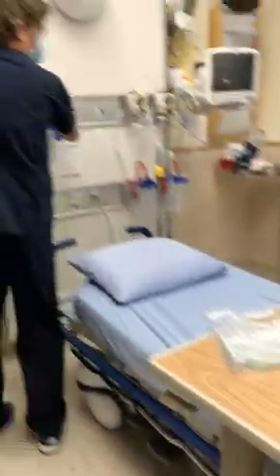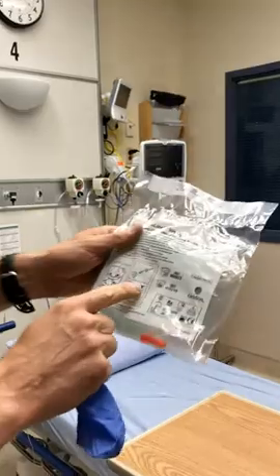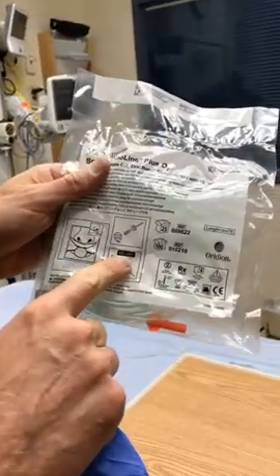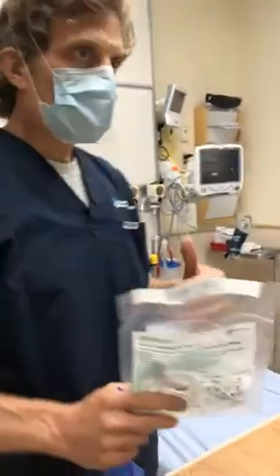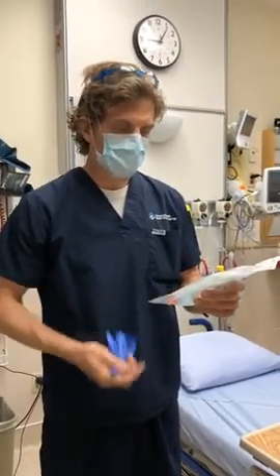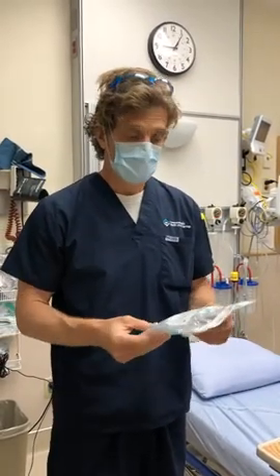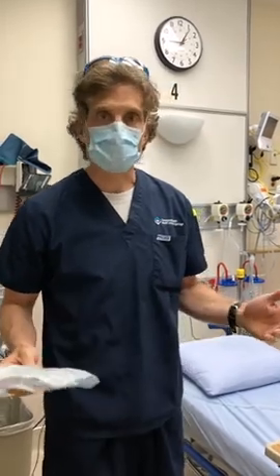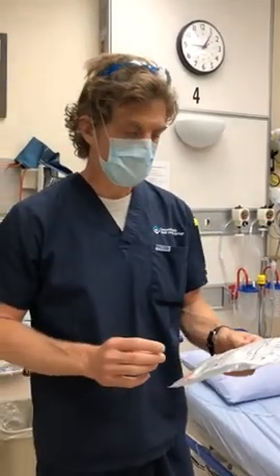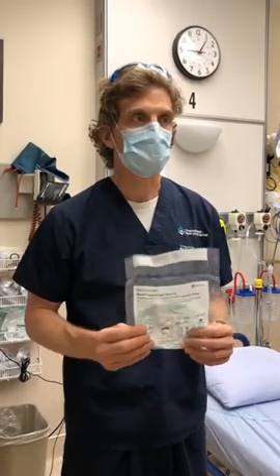The reason this question came up is because the manufacturer recommends less than 5 liters per minute. The problem with flows greater than 5 liters per minute is that it probably washes out the CO2, and your CO2 reading will be inaccurate. This probably isn't very important if you're pre-oxygenating the patient, and it looks like the flow rates through this are plenty to pre-oxygenate the patient if you're preparing for an intubation.